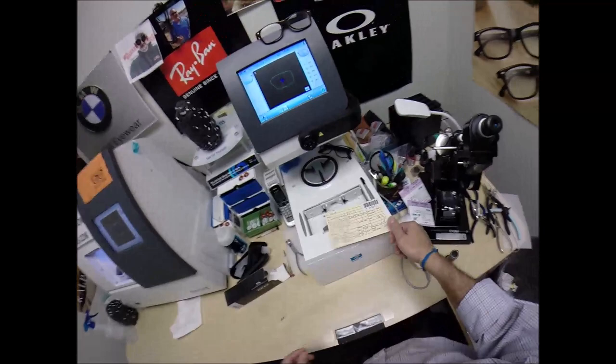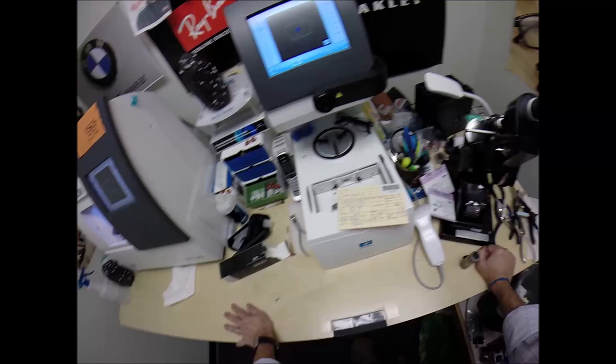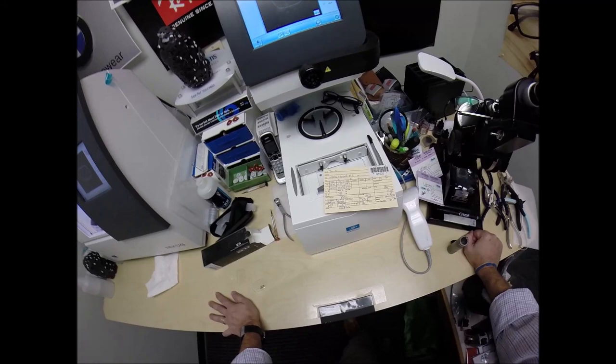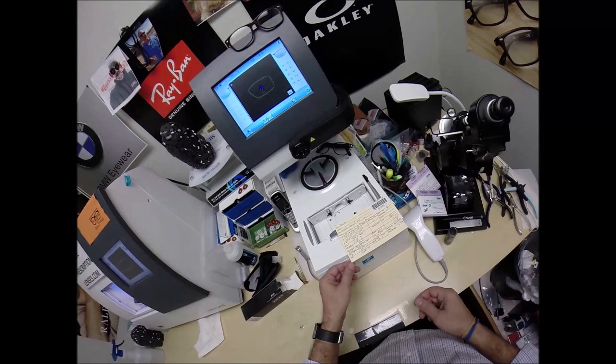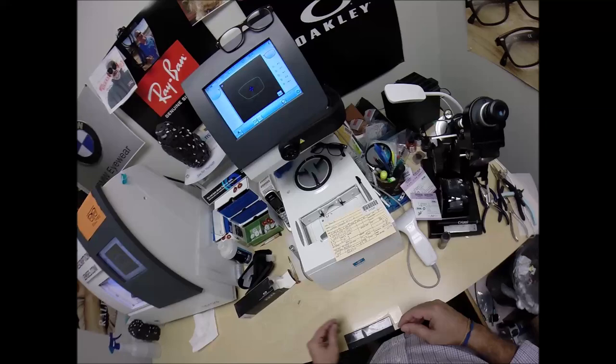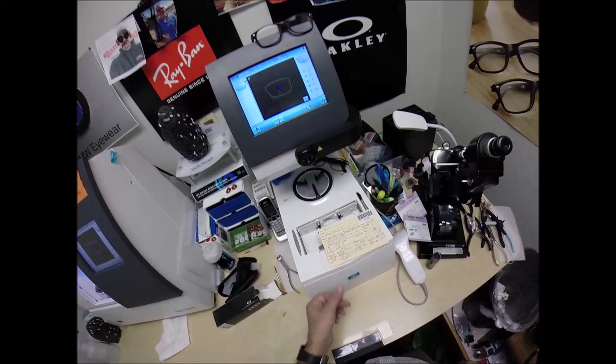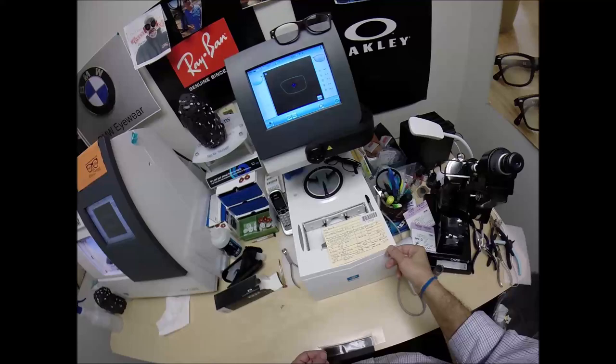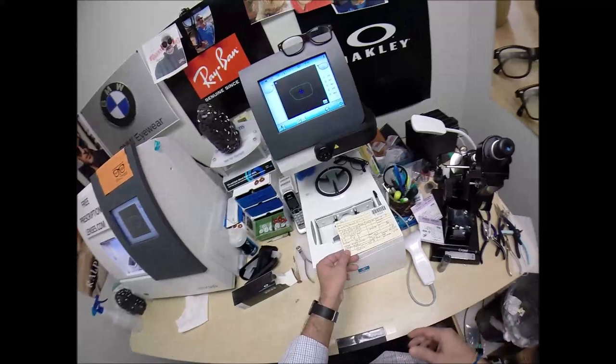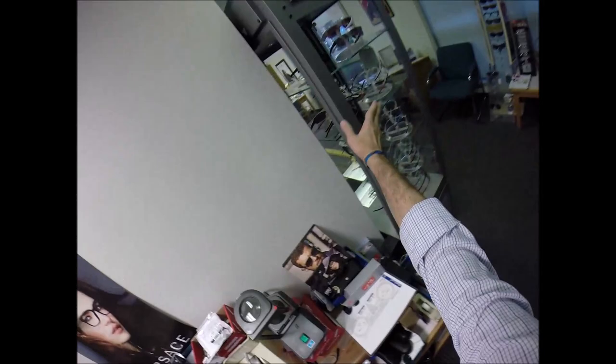You want this OCD guy. What do you call a guy with two thumbs who's OCD about cutting glasses perfectly? This guy. But instead of waiting to find a job that you love that you're passionate about, jump in and become passionate about the job you have. That way you'll be happy. Gratitude is everything in life. Let me turn that fine-tune knob to 73. When I first started in this field I was actually in sales. I never wanted to get back here in the lab and make glasses until I was in school they taught me how. I love doing things with my hand. Fun fact, I love to garden and I'm going to be tilling the garden this weekend getting my seeds planted.